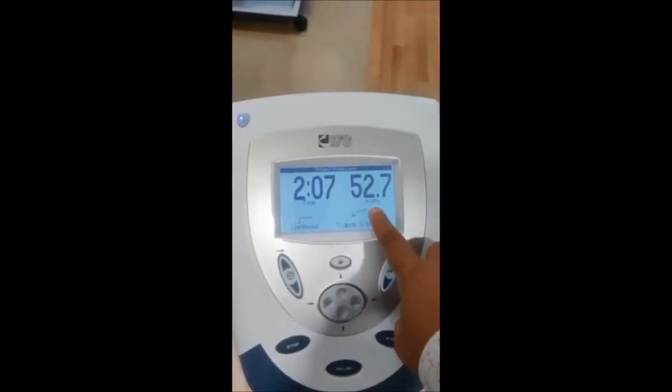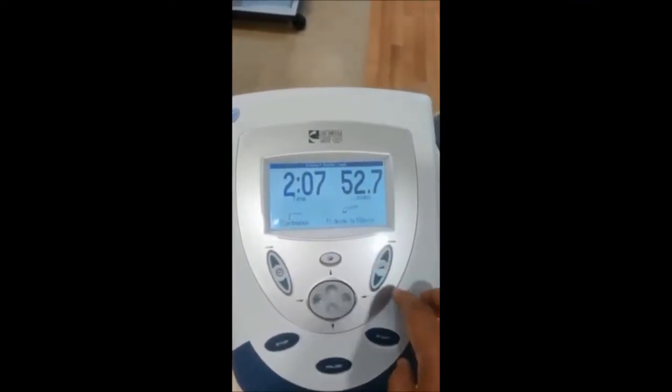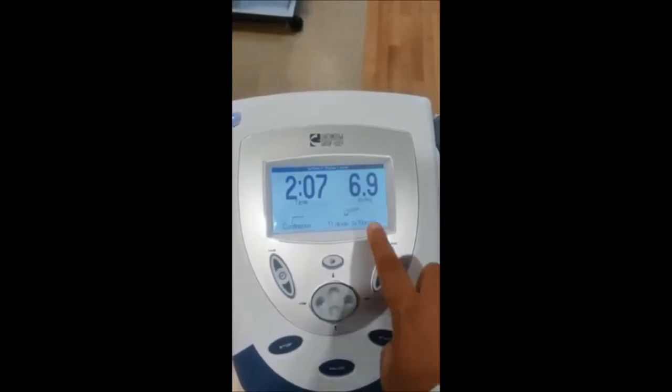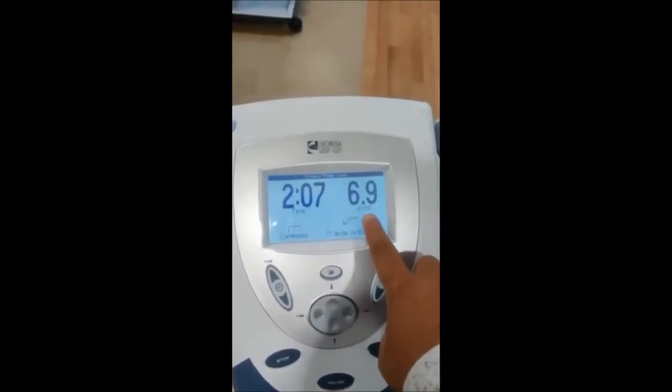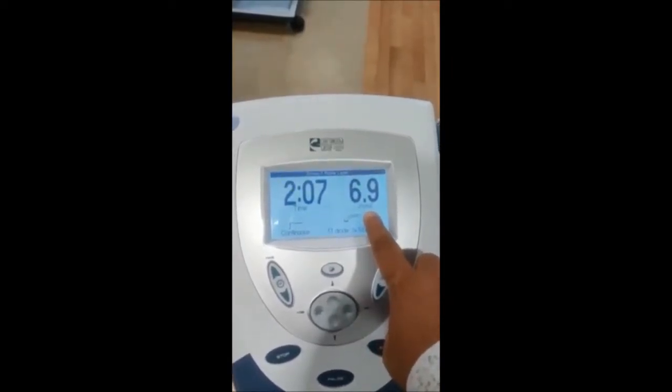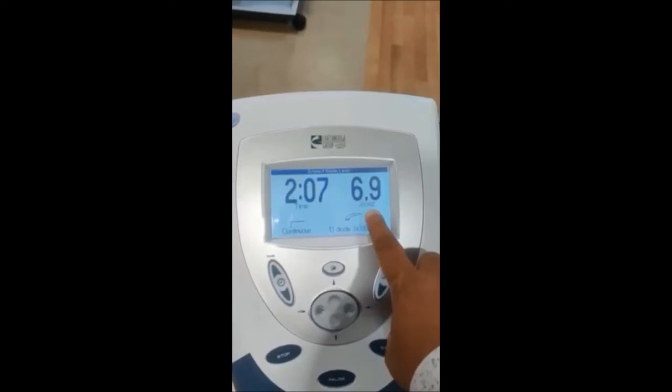Here it is given in joules. You can get output in joules per square centimeter also.